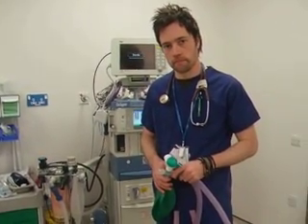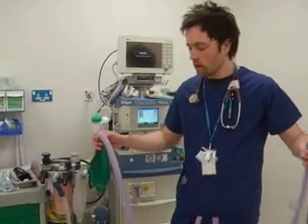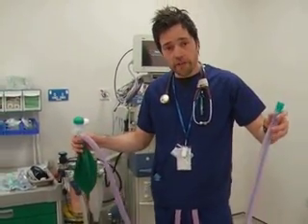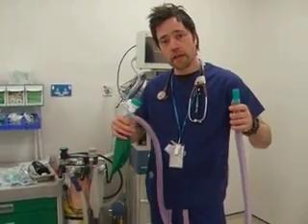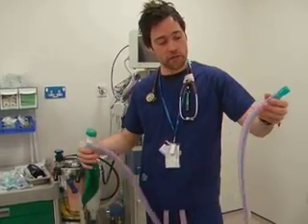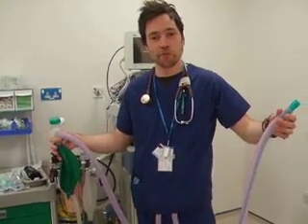And can you tell me why the fresh gas flow is less for controlled ventilation? That's because in controlled ventilation there's a longer expiratory pause, so it doesn't need as long to fill up the space in the outer tubing, which is where you breathe in from.